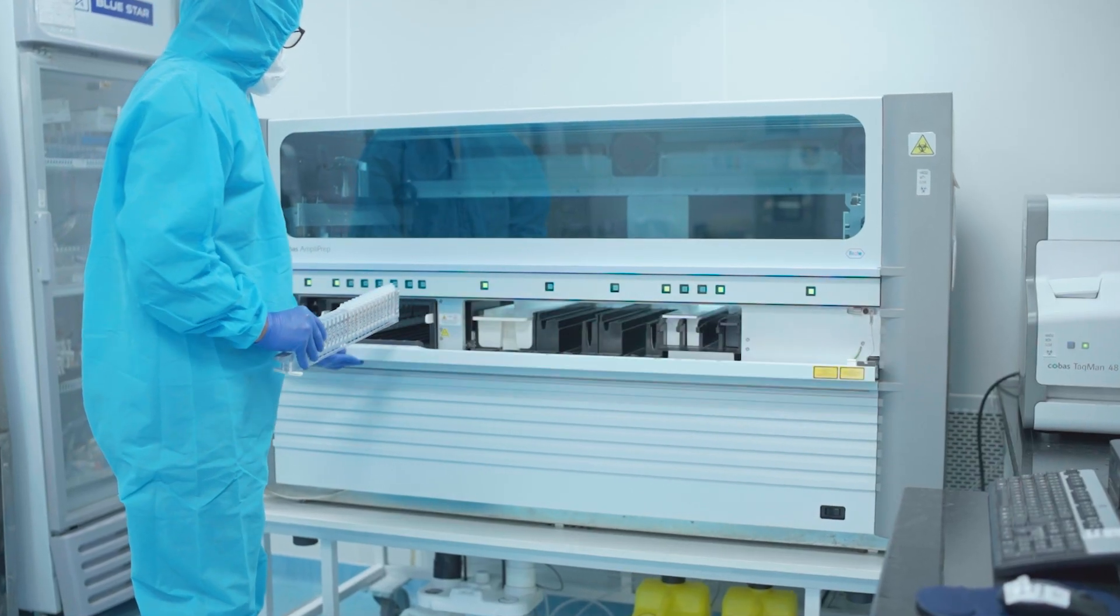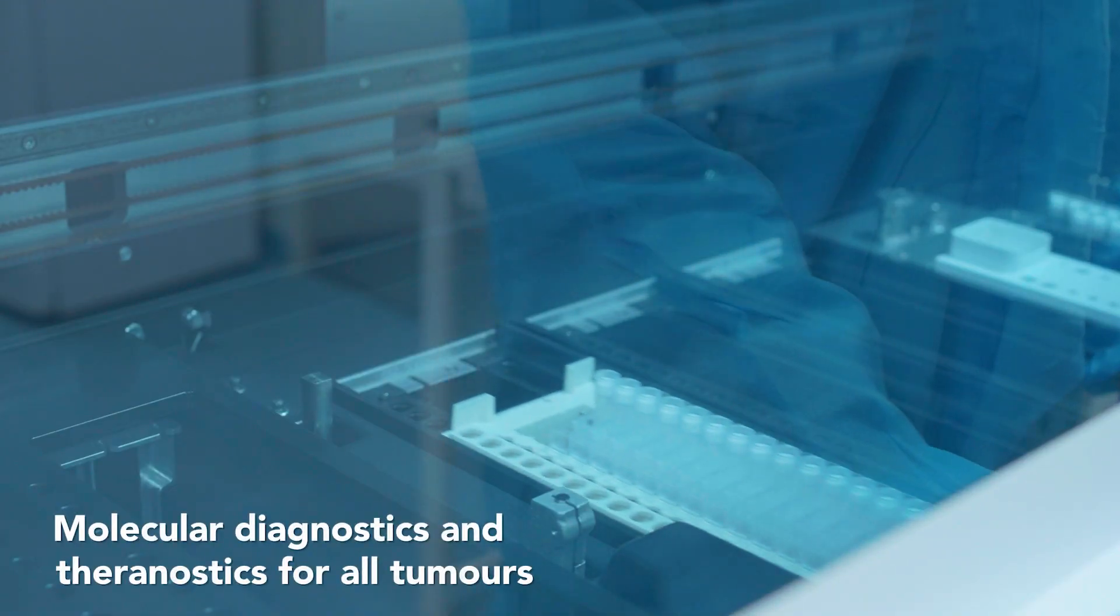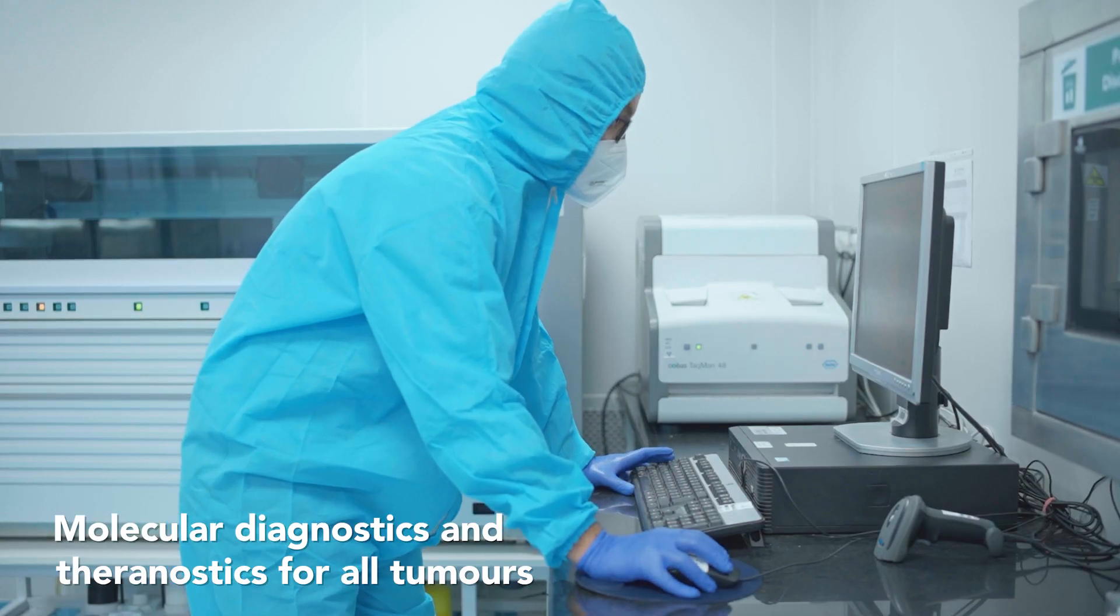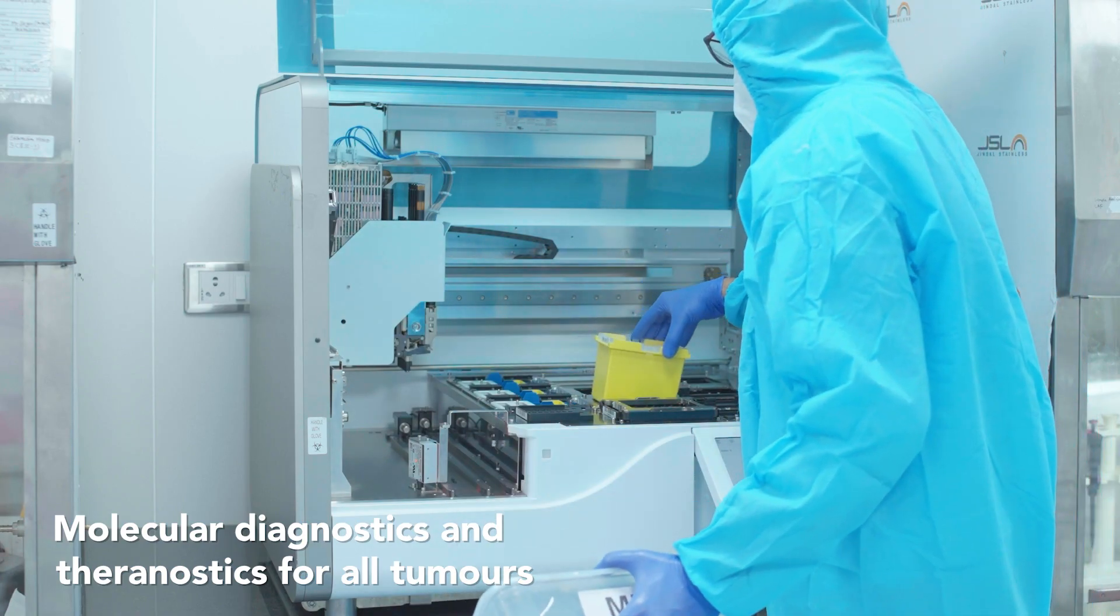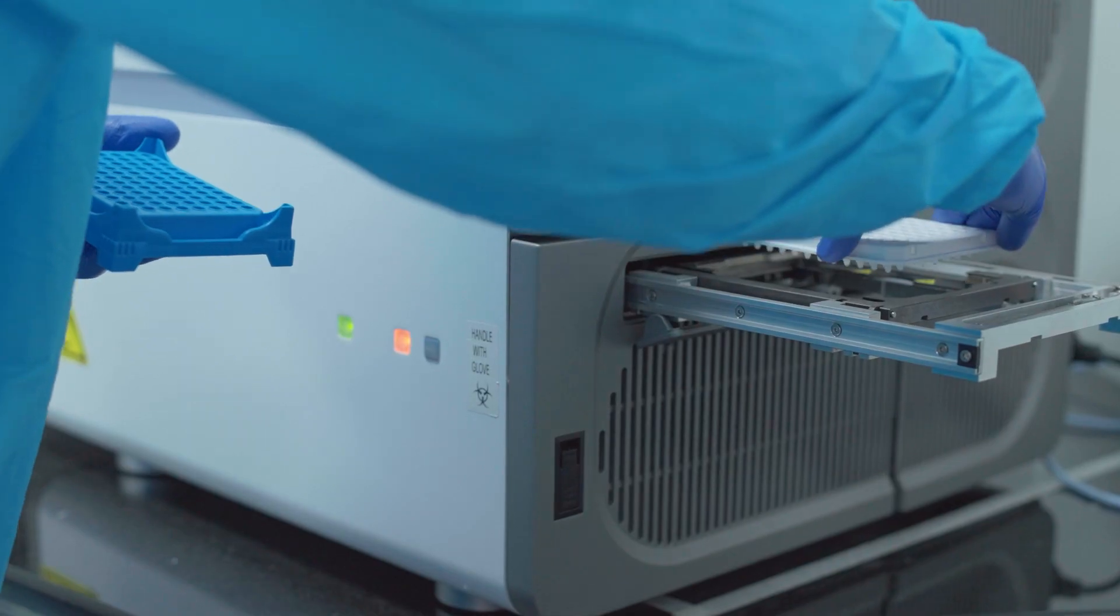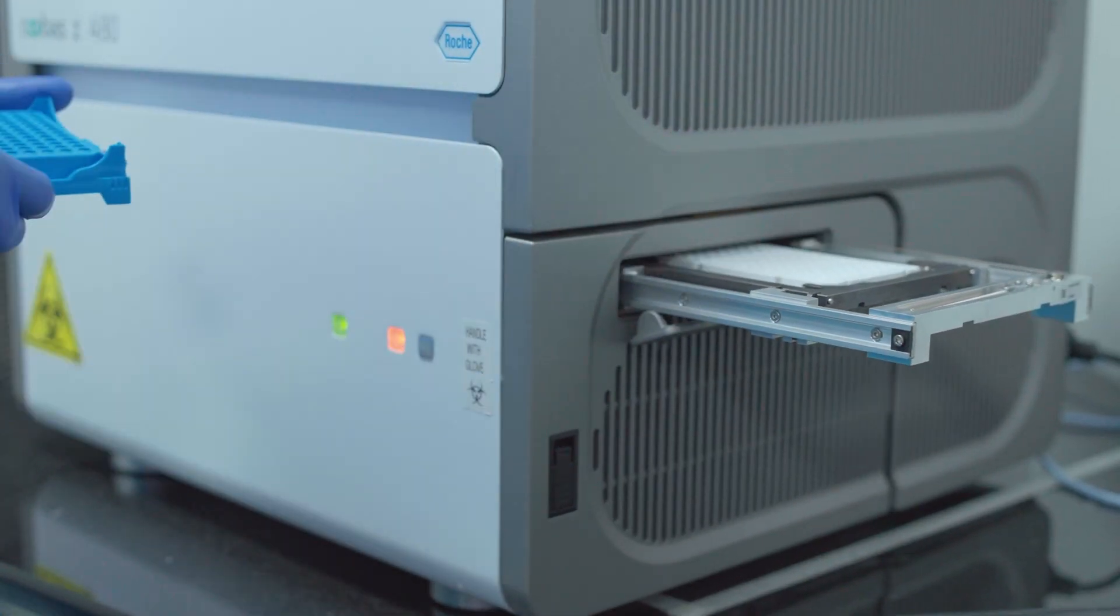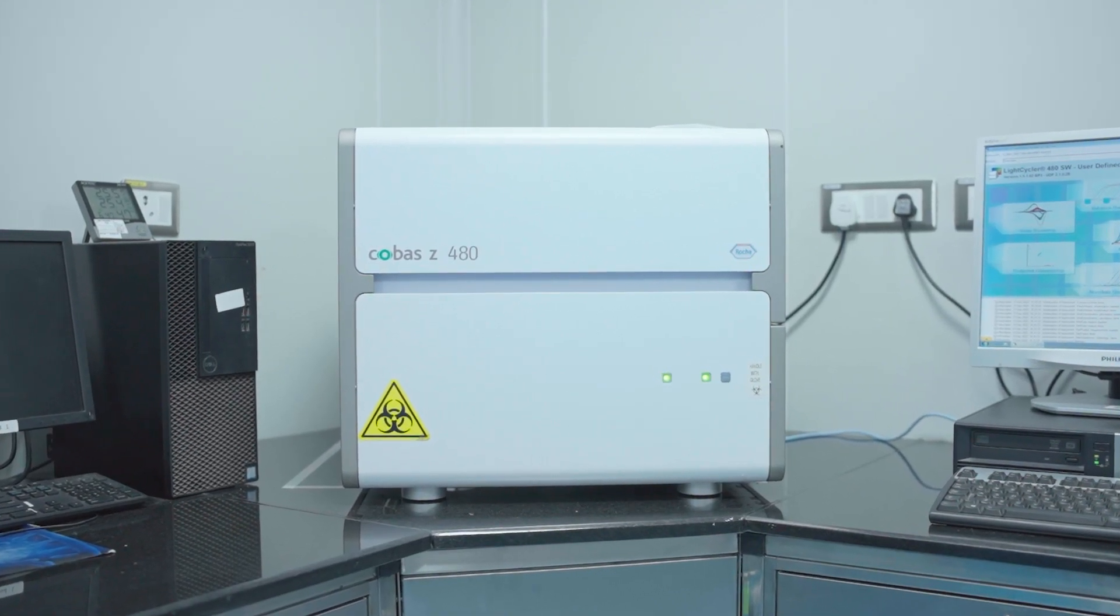Apart from PCR and NGS panels for genetic diseases, we also provide full-spectrum molecular oncology diagnostics and theragnostics for hematological and solid tumors. For integrated oncology diagnosis, our molecular department works hand-in-hand with our clinical chemistry and histopathology department.